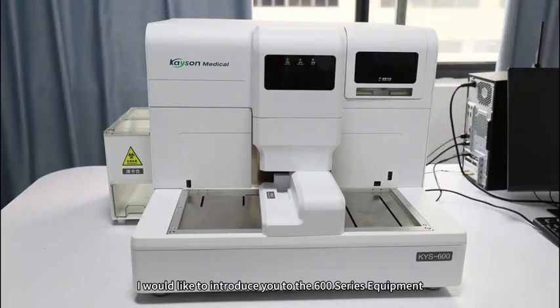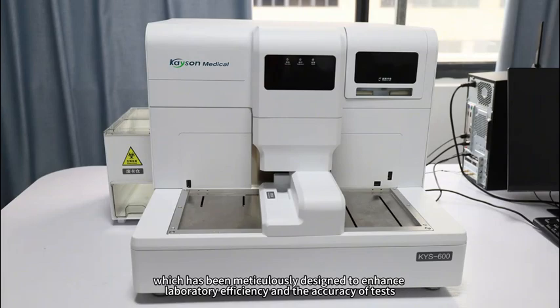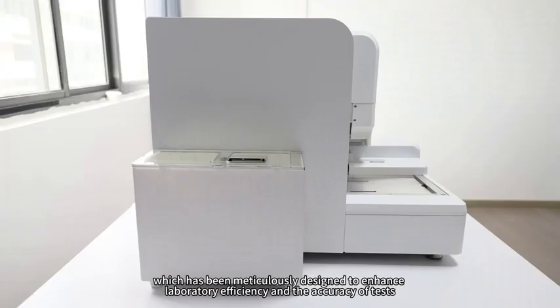Today, I would like to introduce you to the 600 Series Equipment, which has been meticulously designed to enhance laboratory efficiency and the accuracy of tests.